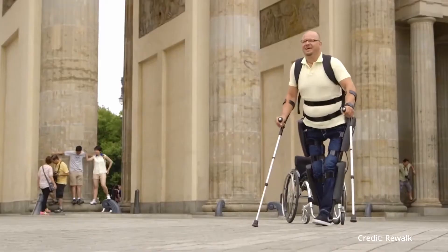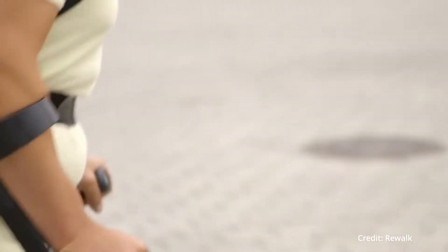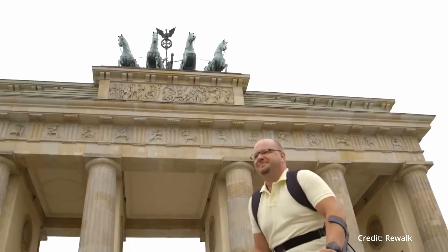Today I wanted to talk about exoskeletons for quadriplegics. Now, in a previous video I talked about exoskeletons for different applications, including exoskeletons for paraplegics. But this time I wanted to focus more on a specific application for quadriplegics, and in particular on the biomechanical challenges that we have to face and overcome in order to develop these devices.